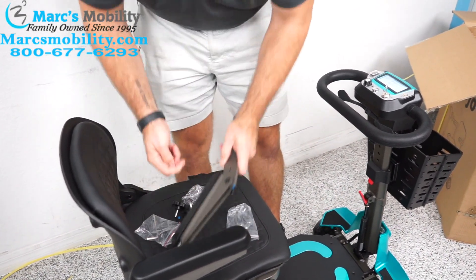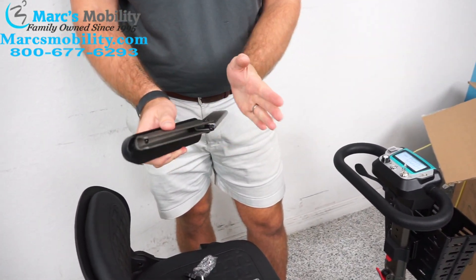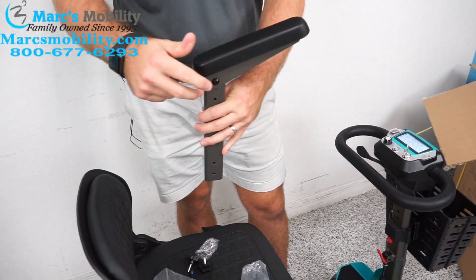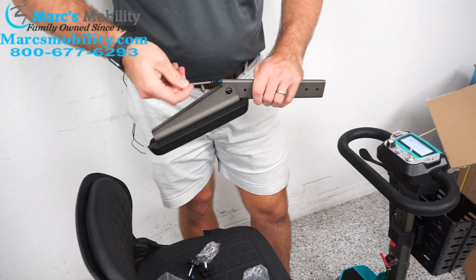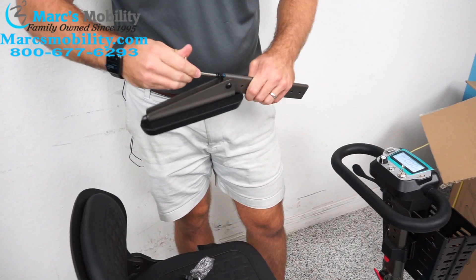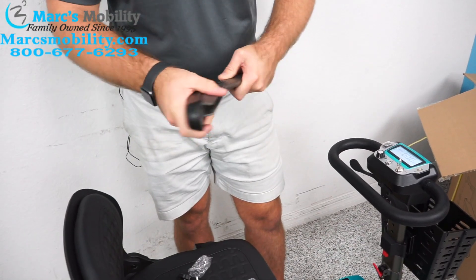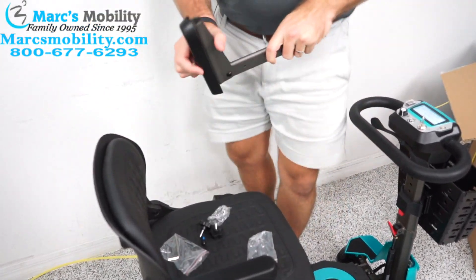You'll want to screw it in because the concept is that depending on how far it's screwed in, your arm is going to be angled downwards. If you don't screw it in very far, your arm is going to be angled up pretty high. We'll take our Allen key and screw it down quite a bit more, then repeat that process for the other side.